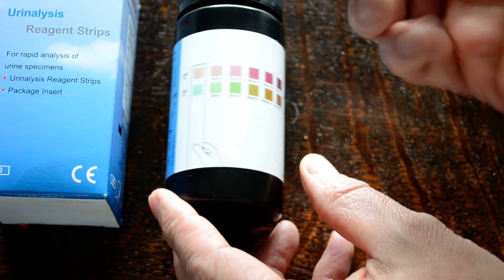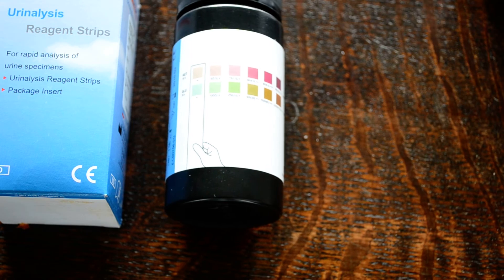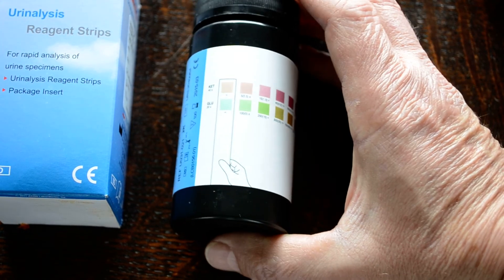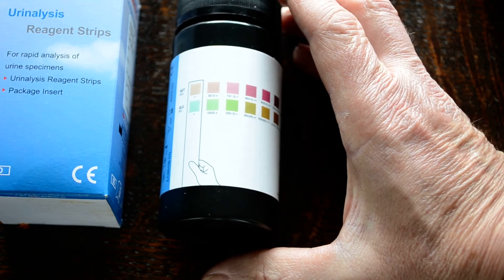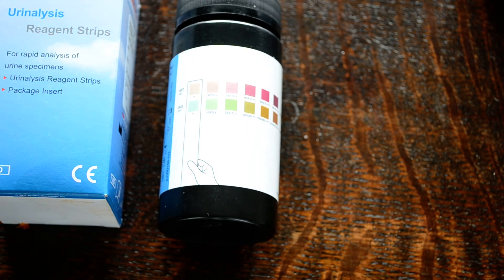When you've completed your test, the test strip can be disposed of. Always keep the lid on very tightly and don't use them beyond the expiry date. The manufacturer's recommendation is to use these tests ideally within three months of opening that security environmental seal, to ensure they perform to the manufacturer's certified quality standards.